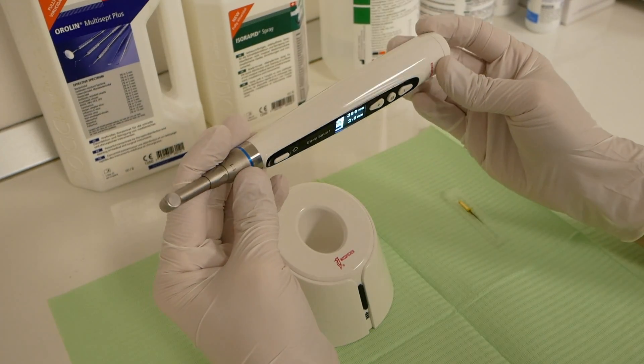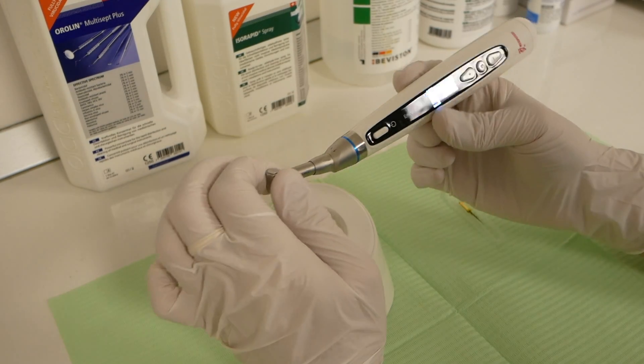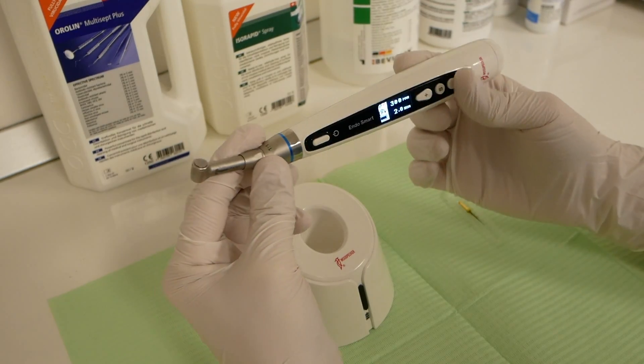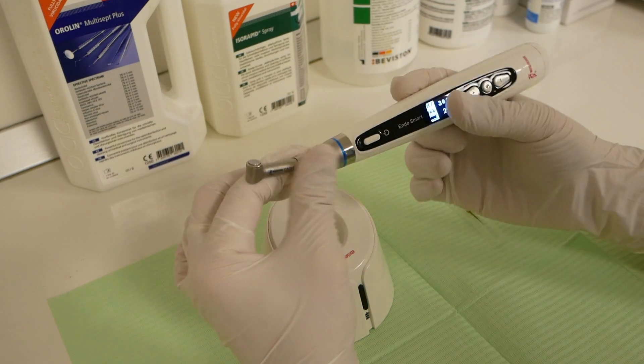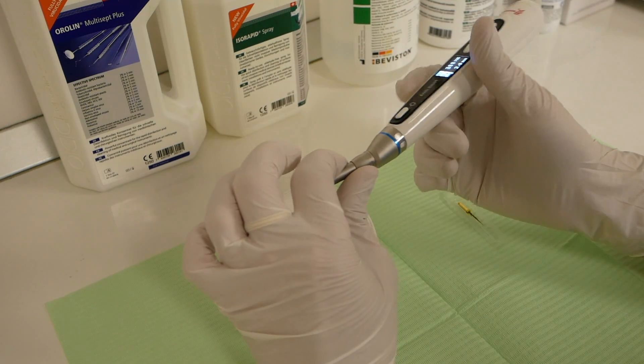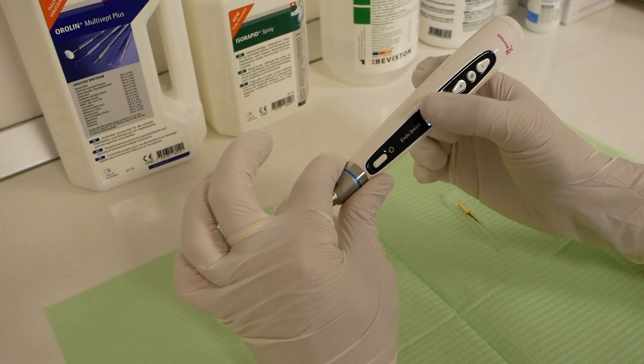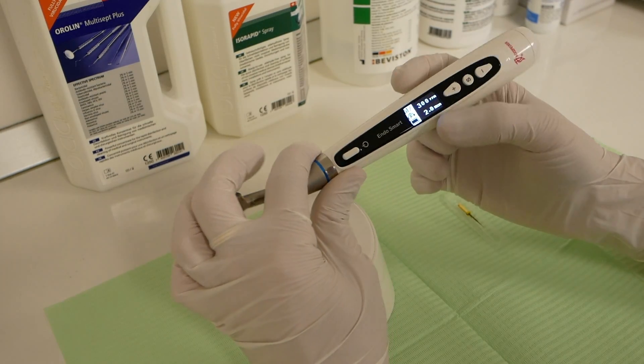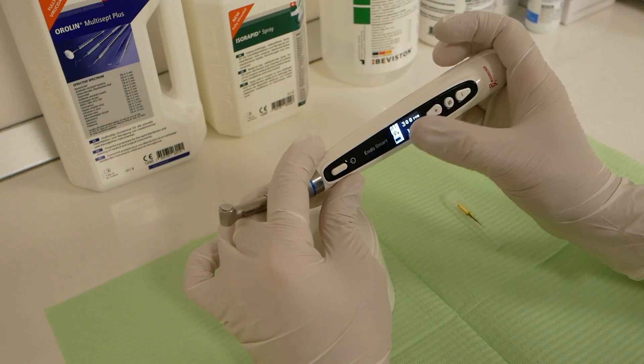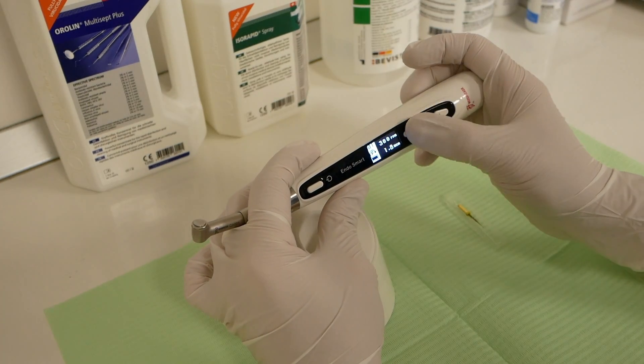The functions this endodontic motor brings are pretty basic, but they're most of the things you'll need in your day-to-day endodontic practice. It features an LCD display which shows you the current program being selected. Very simple, very easy to use.